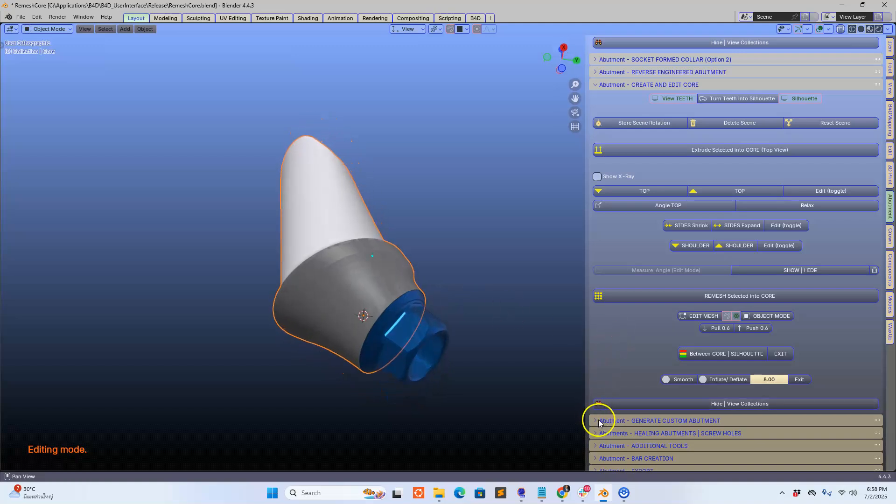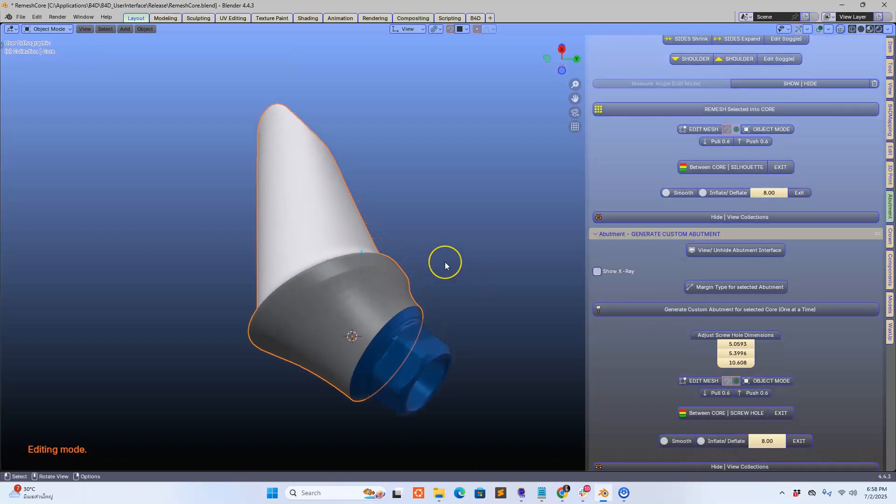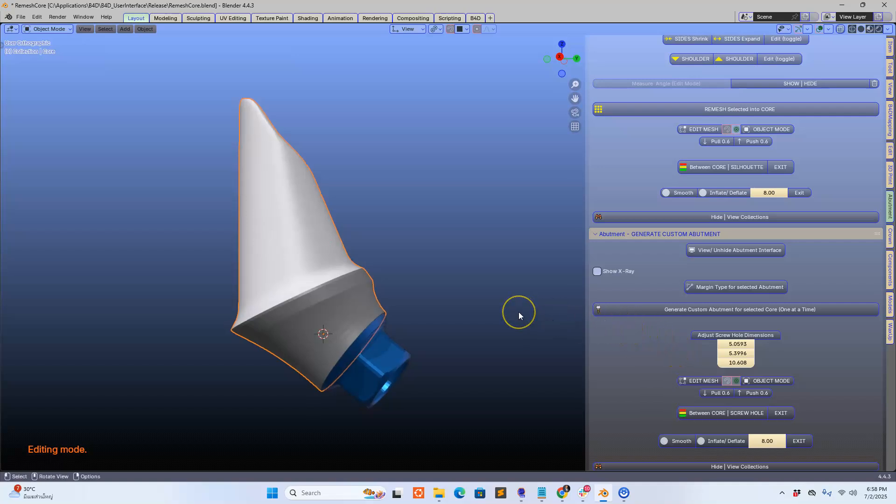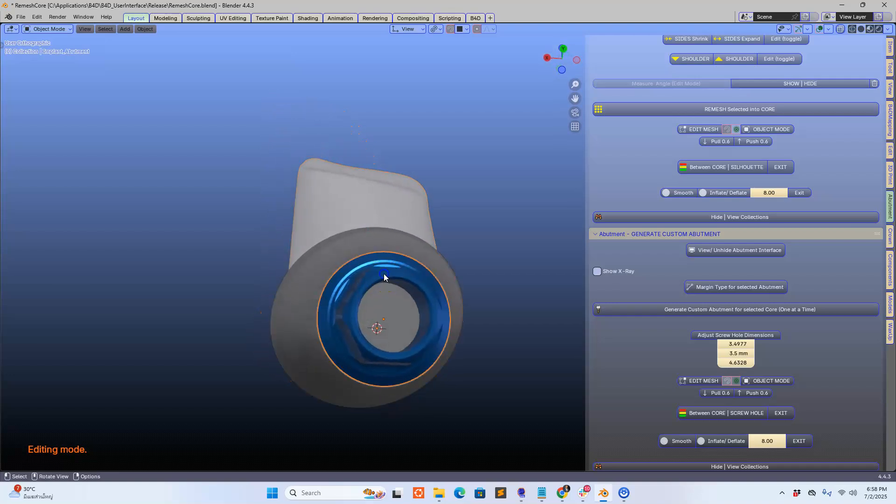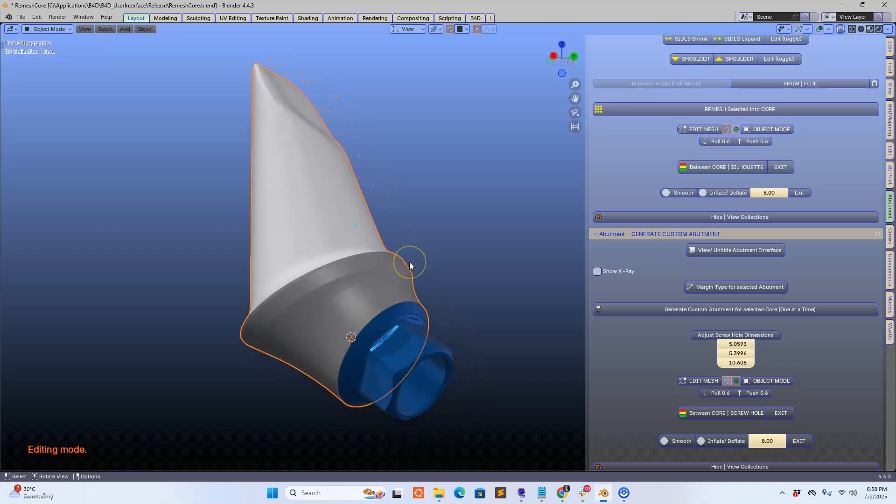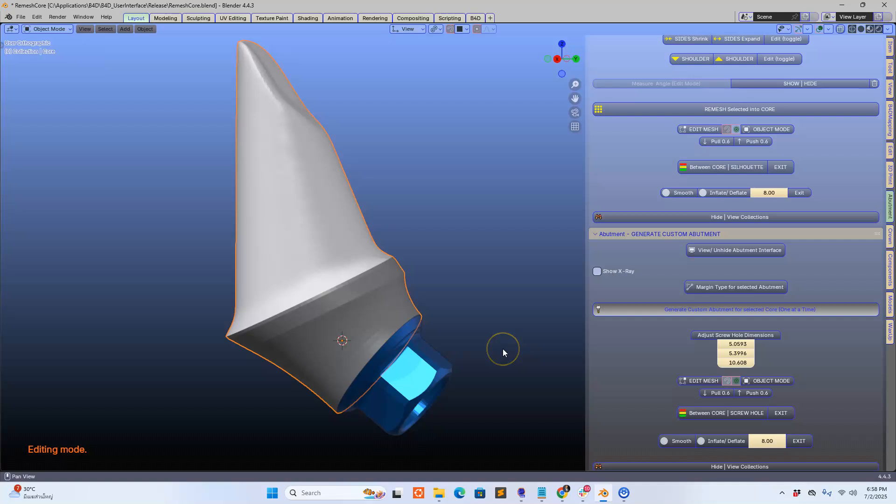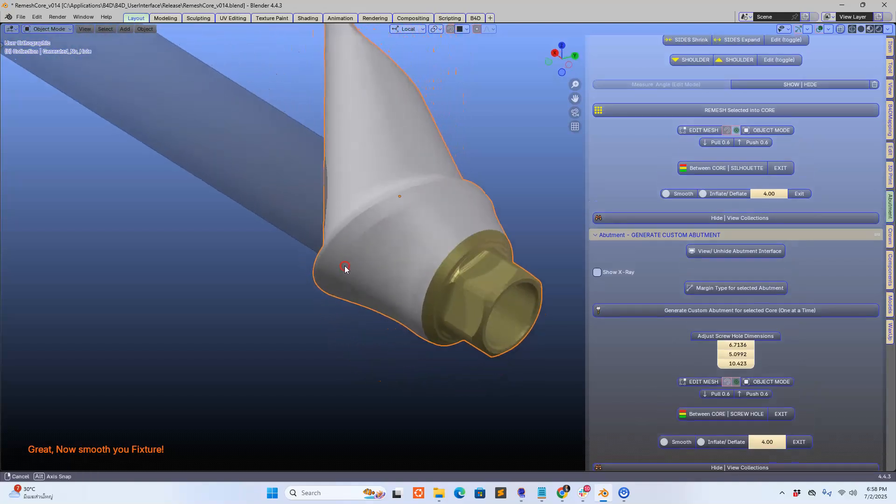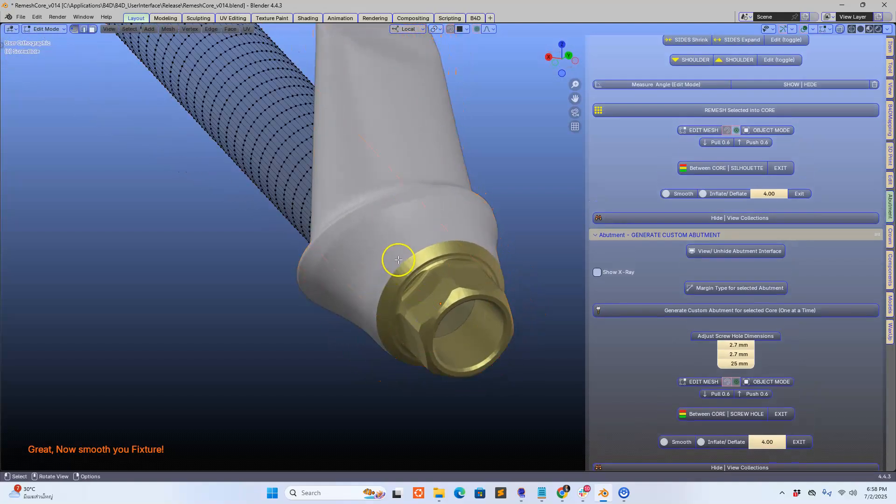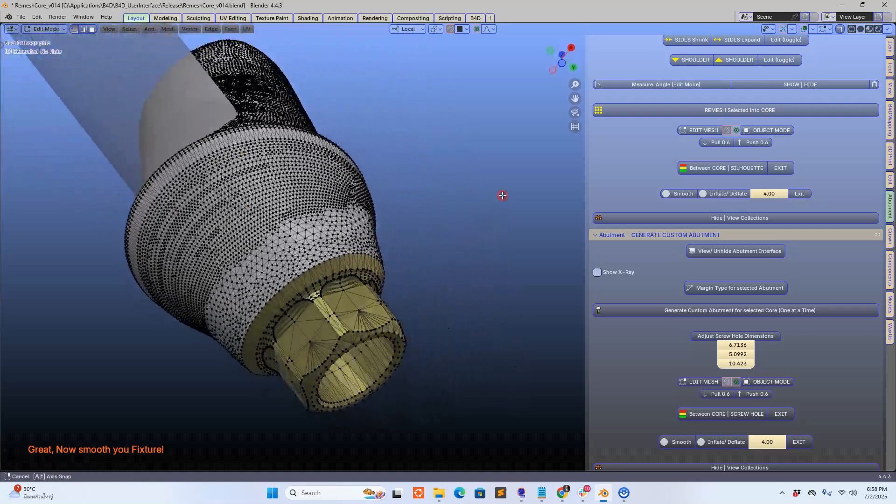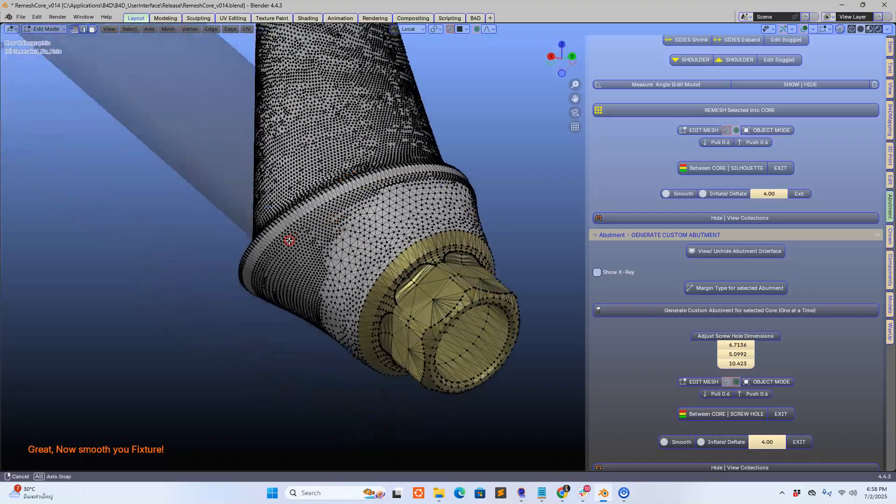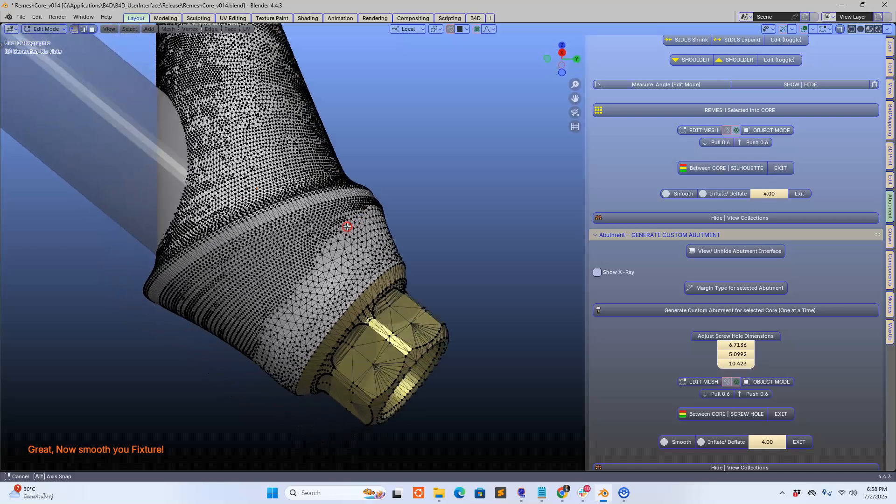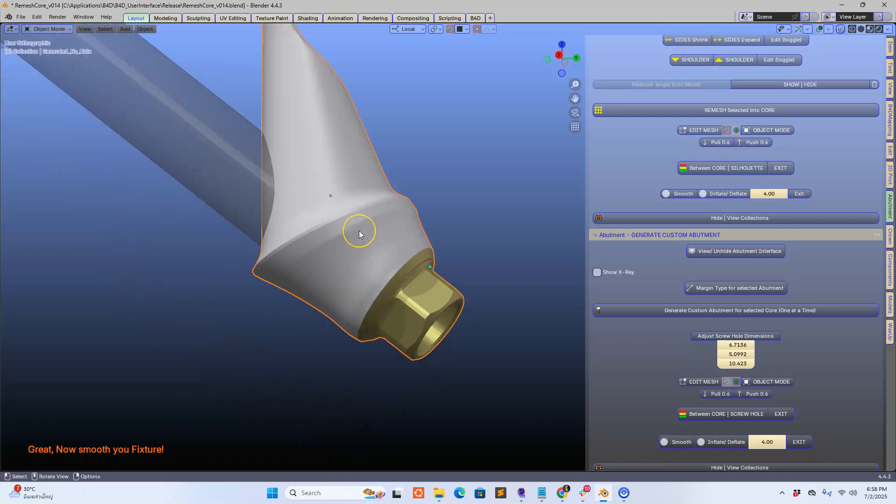We can sculpt smooth this a bit but no need to do that. Let's go to the next menu and this is where we generate. In the previous version we had all these buttons, we cut those down radically so that we can make things simple. We need to attach this little goodie to this little goodie and that's quite easily done by just click of one button like that. So this has improved a great deal. Here we go, this is perfectly united. Let's have a look at the mesh structure. It is absolutely beautiful. A little bit less dense here than there but that doesn't really matter. Overall it's just absolutely incredible.